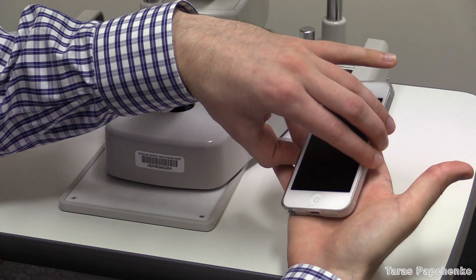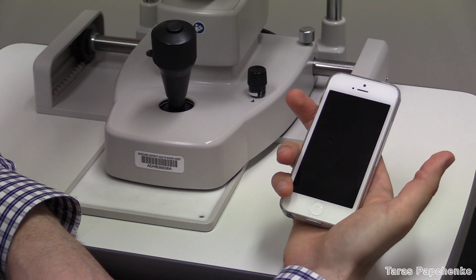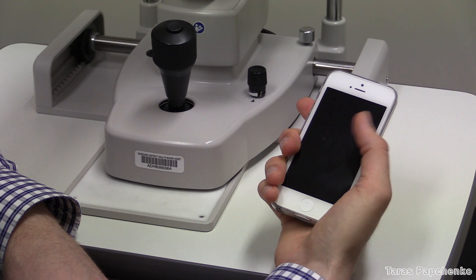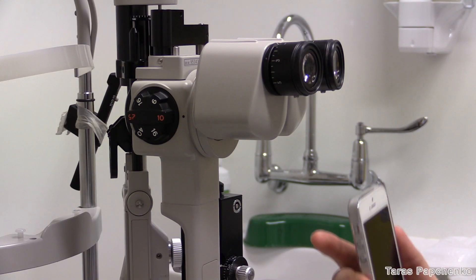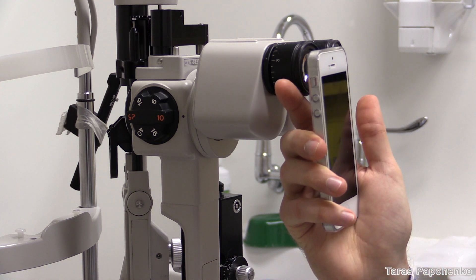Now, how to hold your phone. Put the phone in the palm of your hand so the bottom right corner is jammed at the base of your thumb, with the other three fingers gripping the phone from the other side. This leaves your thumb and your index finger free. With your index finger, touch underneath the left eyepiece — this will steady your camera for the shot.